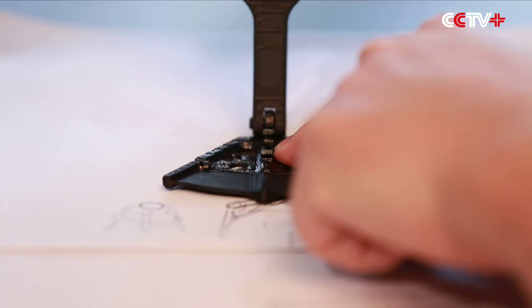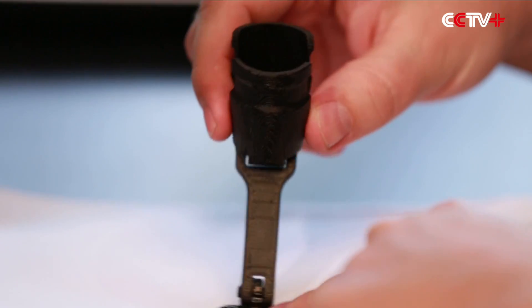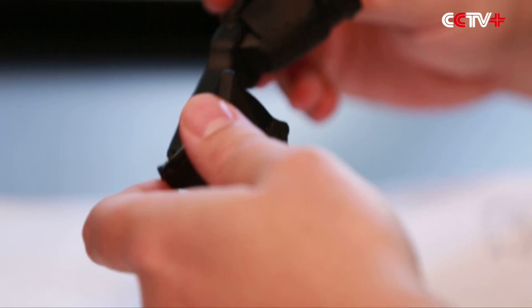Toe forward, that's the ankle, and that's the knee joint that goes to the back. We can also do it digitally on the computer, and you can get a very good idea about it.